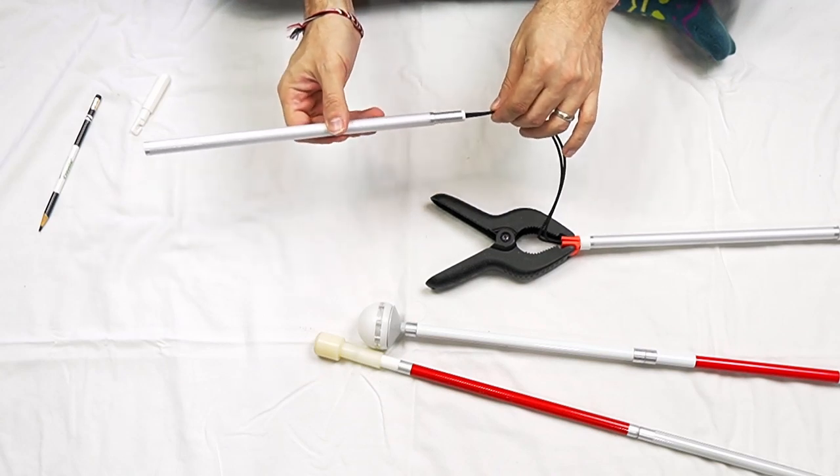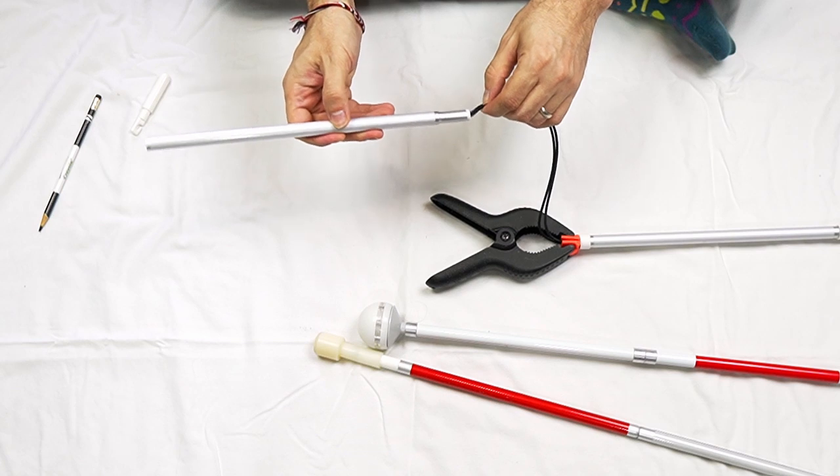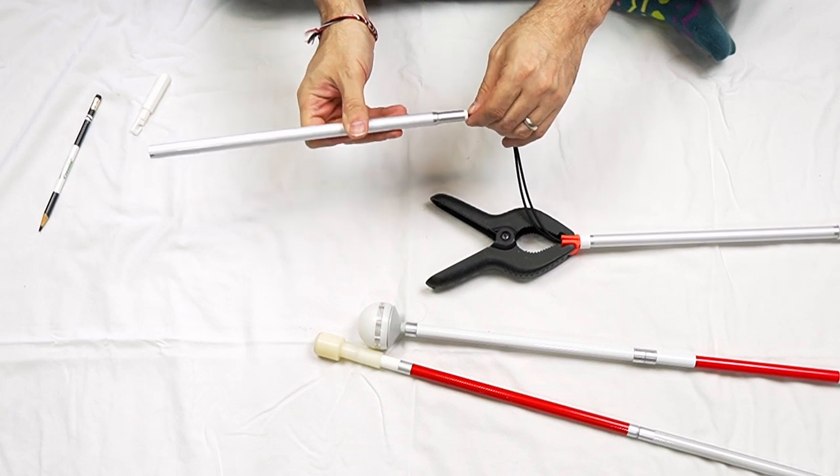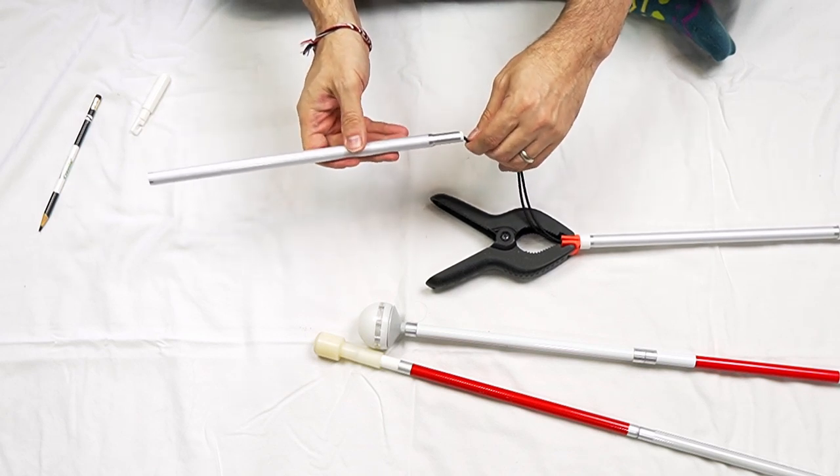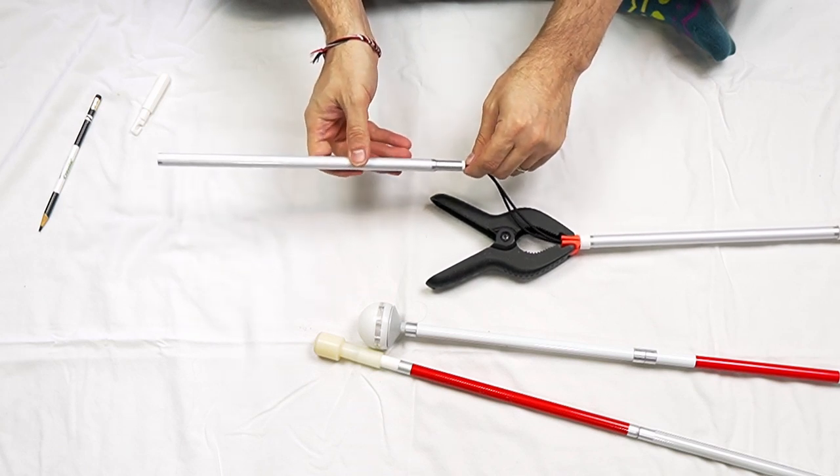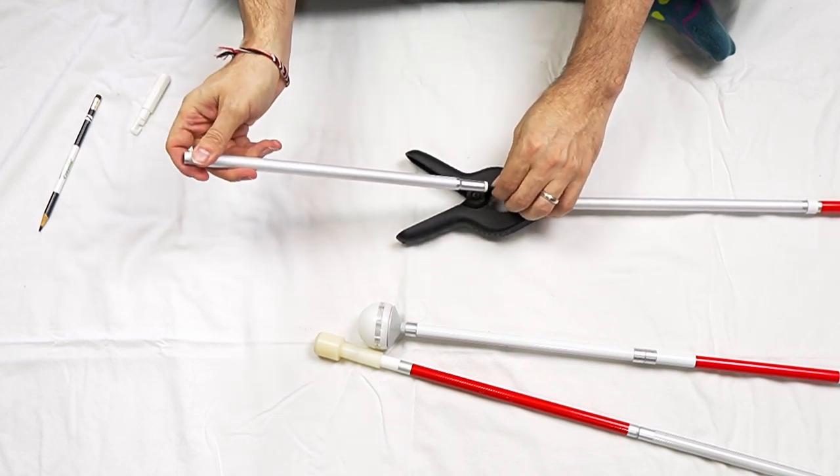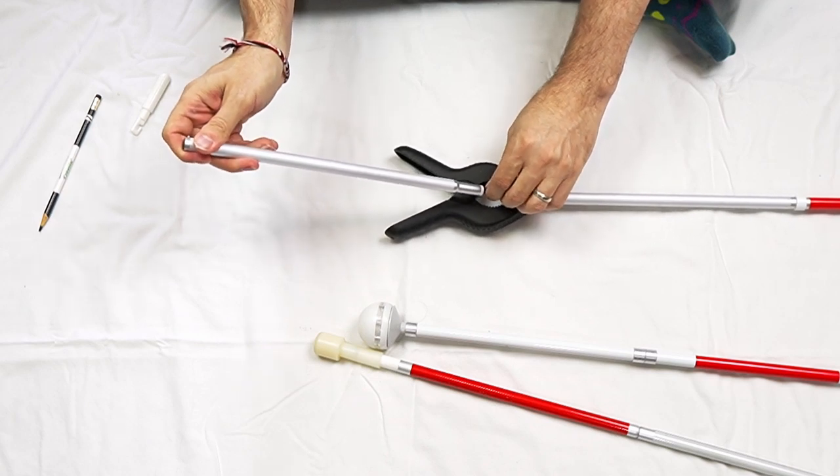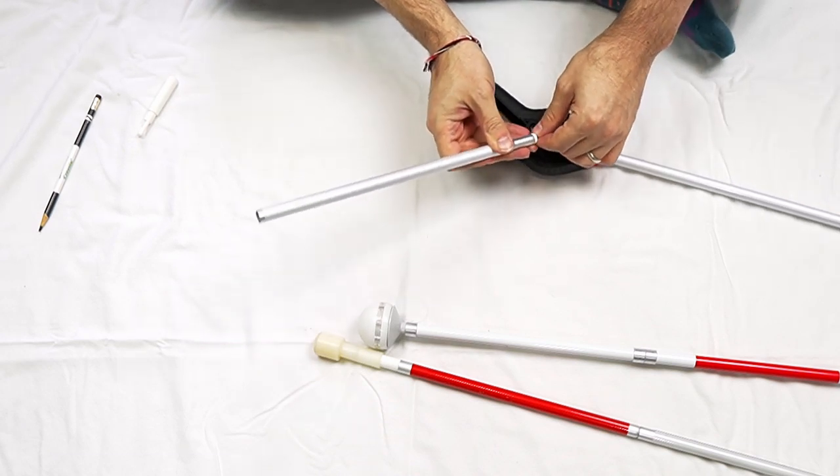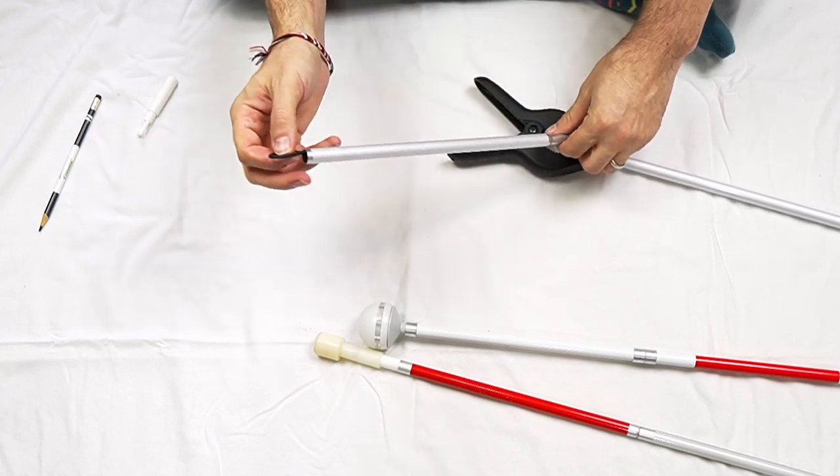And if it's a little tight of a snug fit, what you can do is twist the cane as you gently push up on the cord. That helps kind of loosen everything up and free it so it moves smoothly inside the metal tube. And you just want to very slowly work it up, small sections at a time, all the way up until you see the cord or you feel the cord come out the other end of the cane. So I'm going to continue pushing up, pushing the cord up through the metal tube. And there it is. It's poking out at the back, the end.